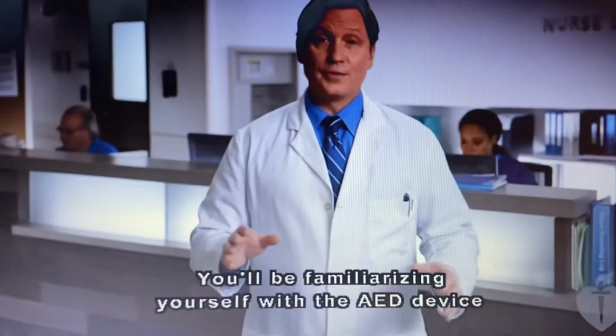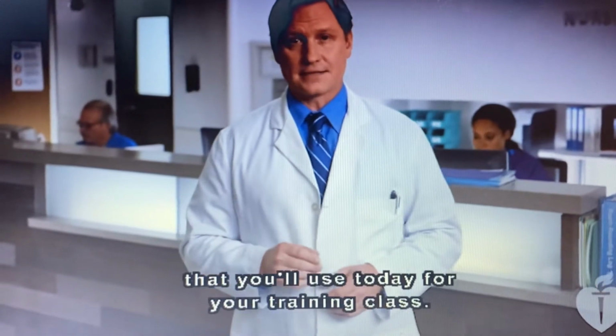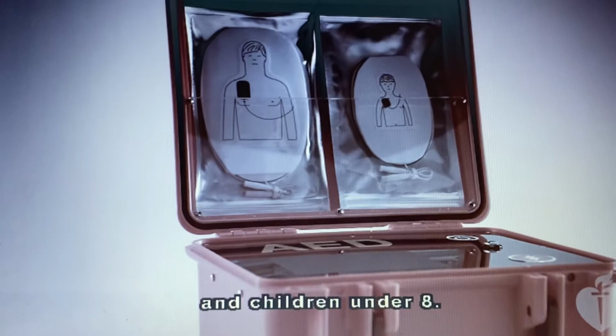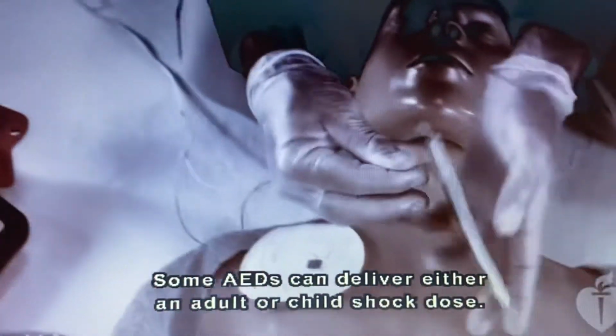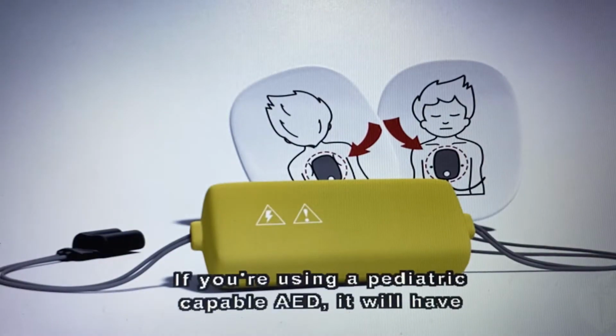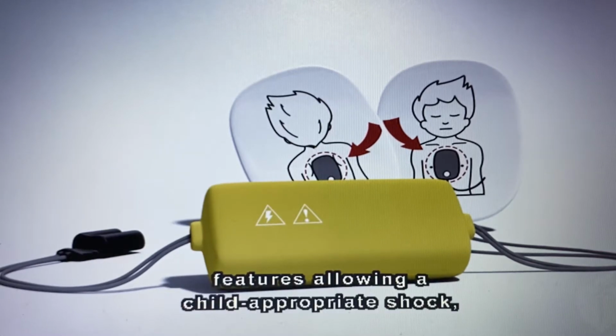AED. You'll be familiarizing yourself with the AED device that you'll use today for your training class. There are some differences for the use of an AED for infants and children under 8. Some AEDs can deliver either an adult or child shock dose. The child dose is used in children under 8. If you're using a pediatric-capable AED, it will have features allowing a child-appropriate shock.